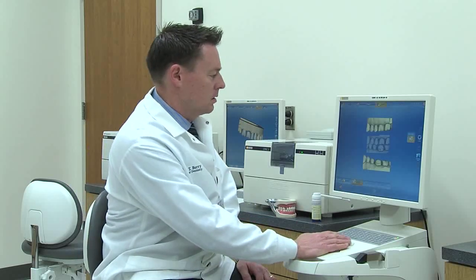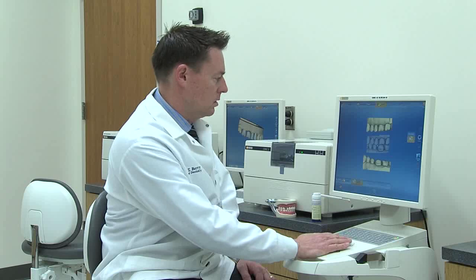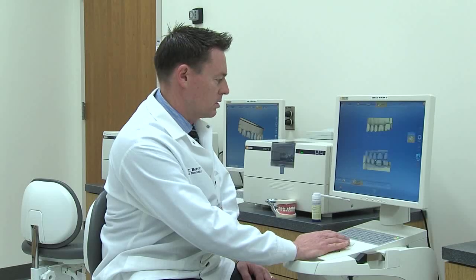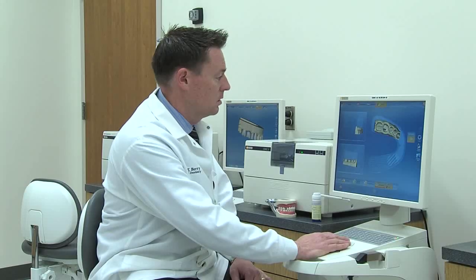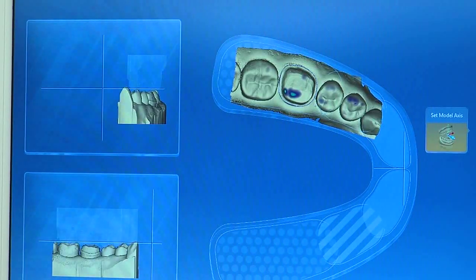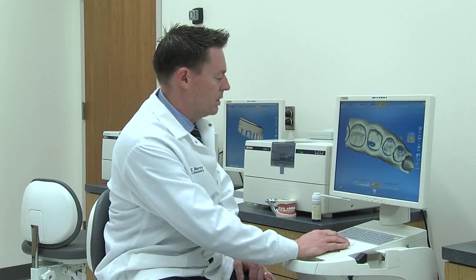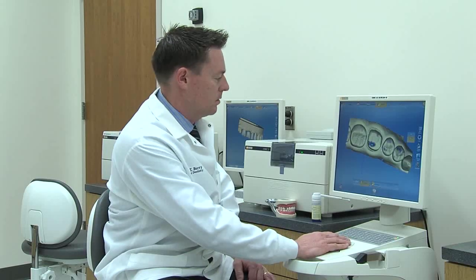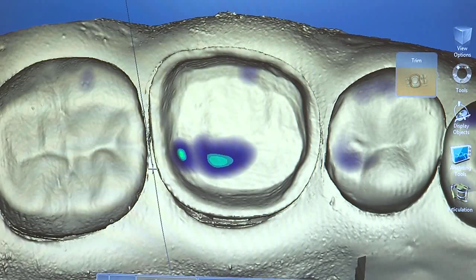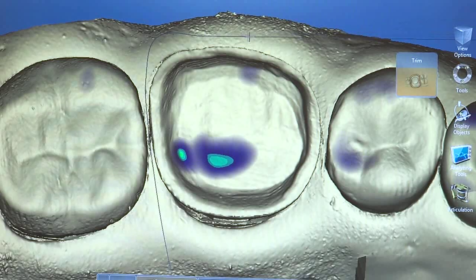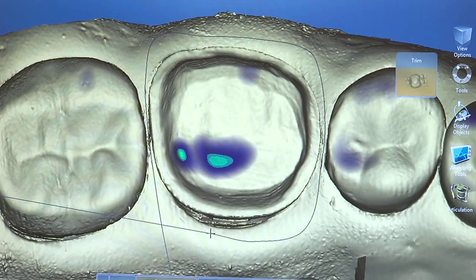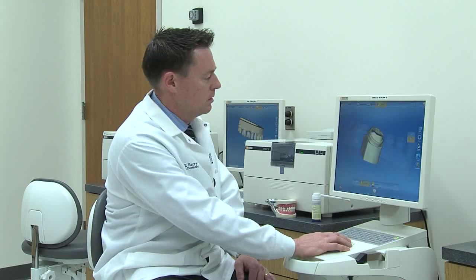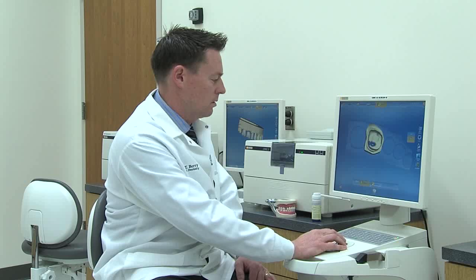In this phase of the design, we need to put the images together using the buccal bite, and this will allow us to create a 3D model. We're correlating the upper and lower models. Now we need to isolate the preparation from the rest of the teeth, so we'll use our cutting tool to digitally cut our model — similar to creating a die in the laboratory. And you can see here that it creates a single tooth model for us.